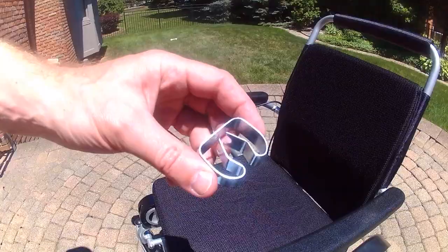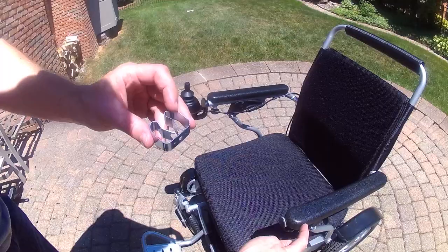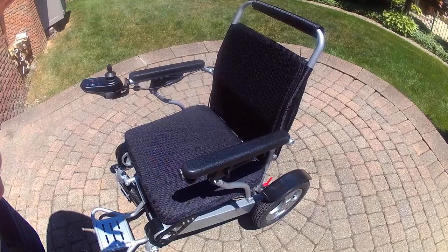The cane holder that comes with the AHXLS and the Eagle is very easy to attach. You can see that this cane holder comes solo. You would just simply have to purchase a screw if you were going to actually affix it to the actual unit.